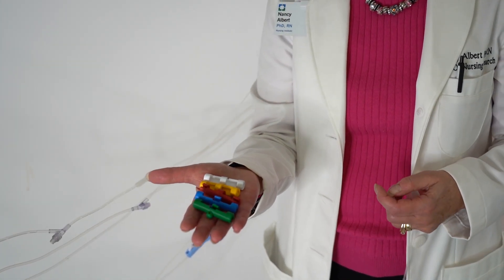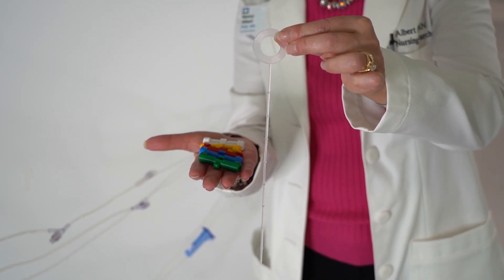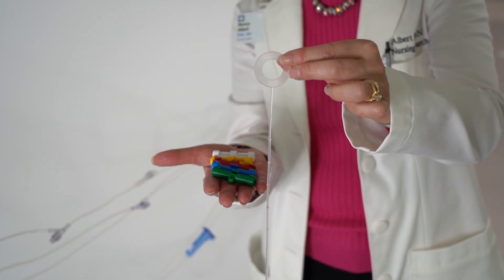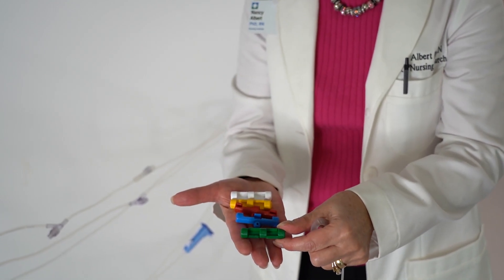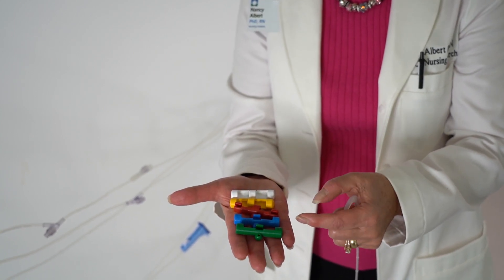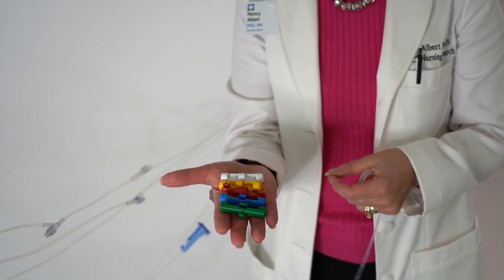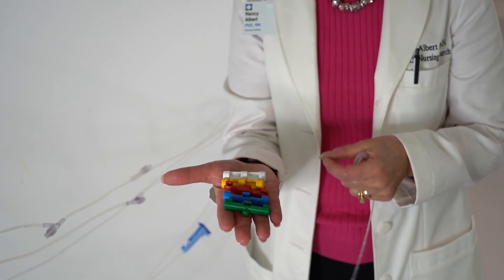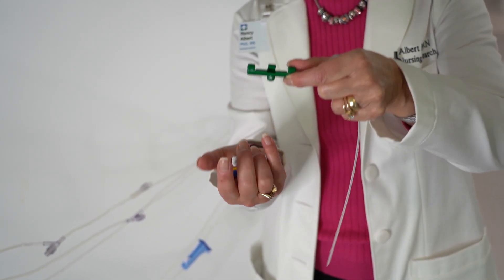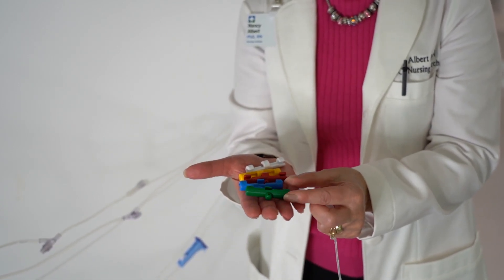The HiLine has two components. It has a stem which is ten inches long and has little cones on it to keep the cradles in place. Each cradle has three grabbers to hold onto the IV tubing. The hole in the middle of the cradle is wide enough to allow smooth movement of the IV tubing once it is sitting in the cradle. Each cradle has a hole on the outer edge to insert through the stem, and this takes only a few minutes to insert.